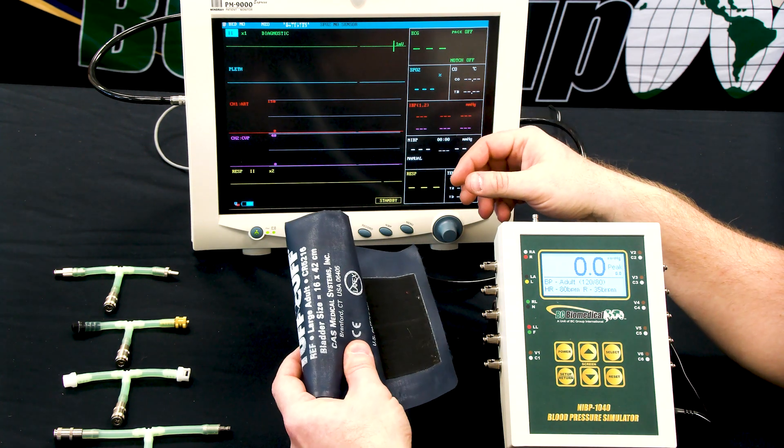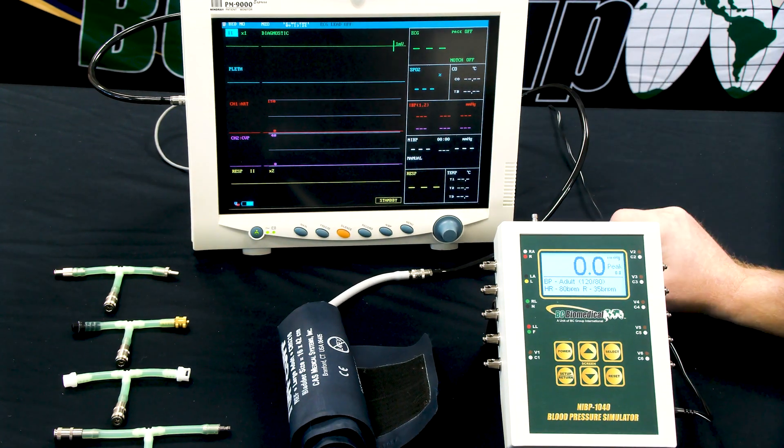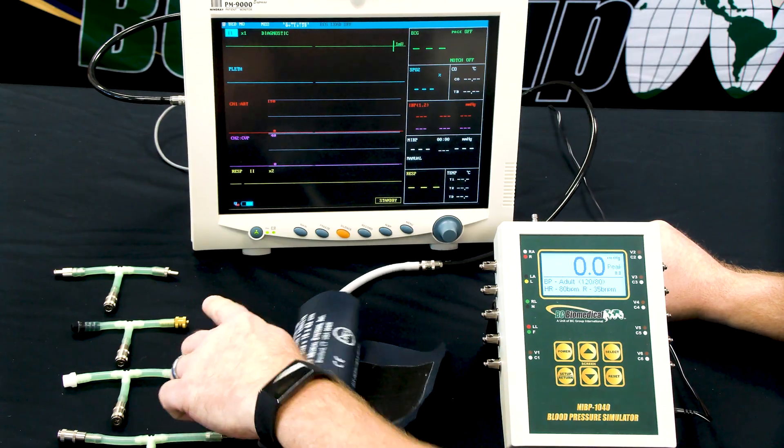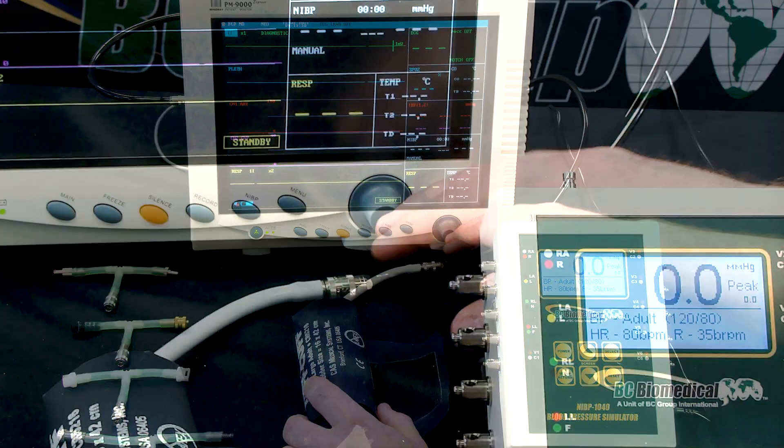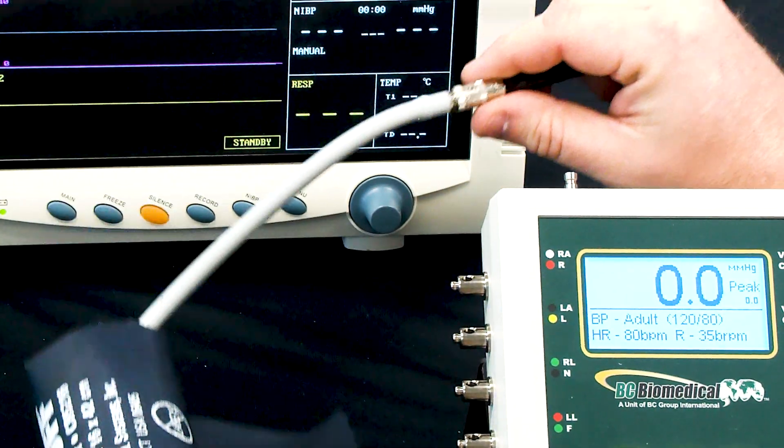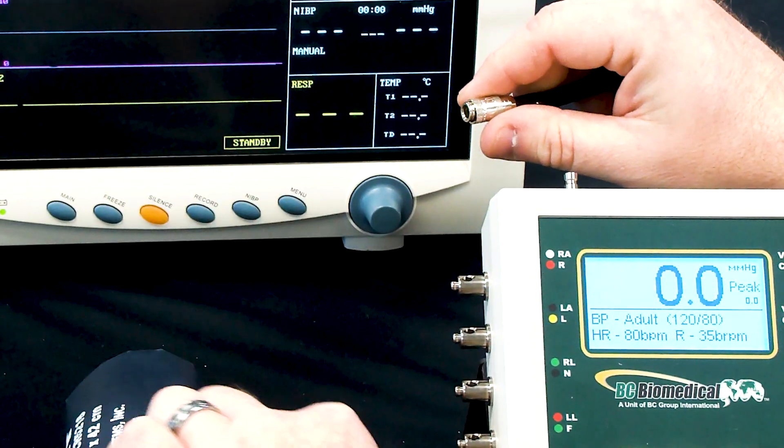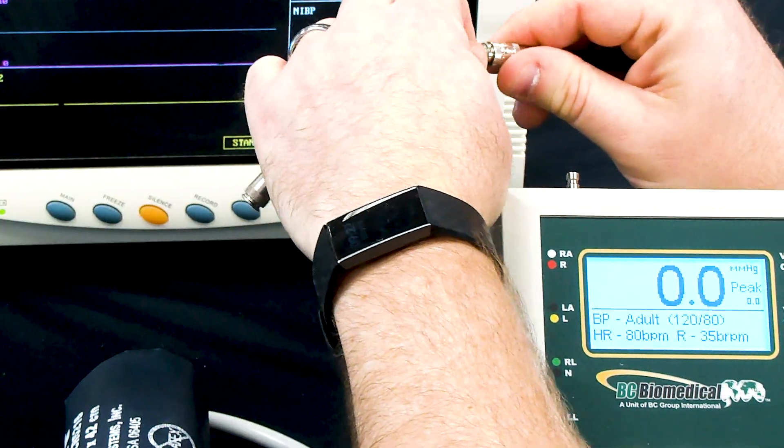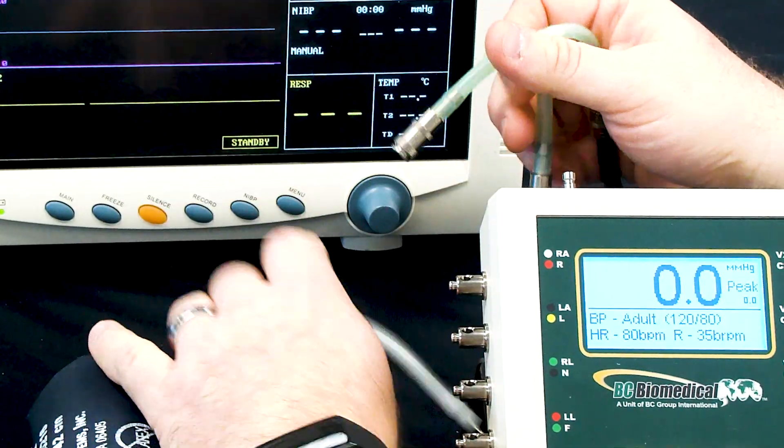We have the standard cuff that would normally be used on the patient, and we have several adapters available based on the cuff type. So the first step we have to do is put the T into the tubing between the monitor and the cuff.